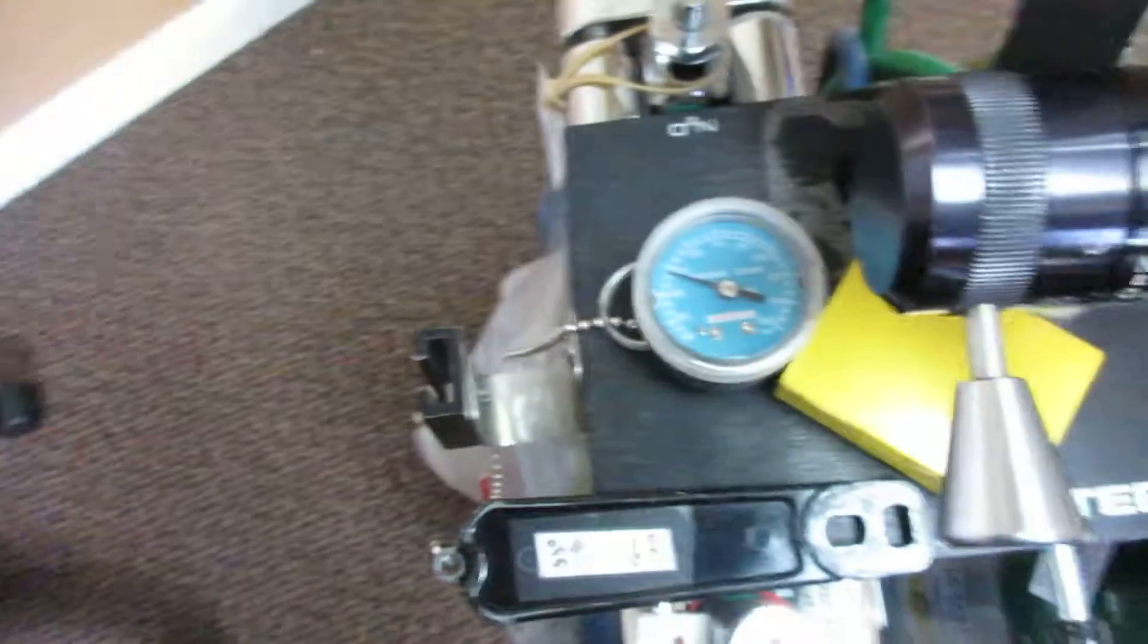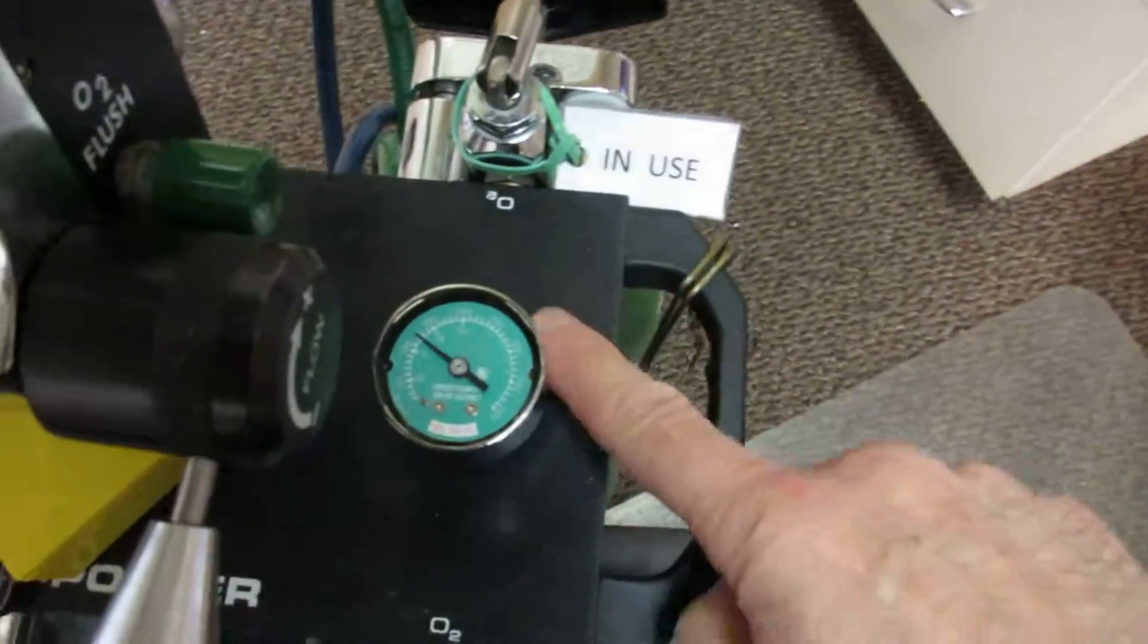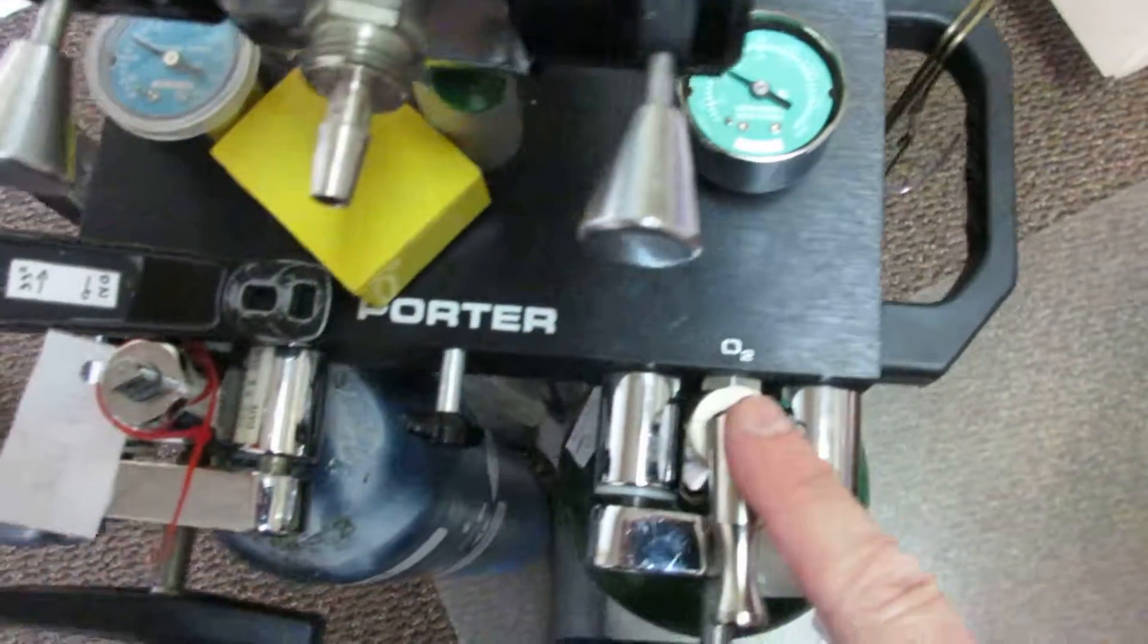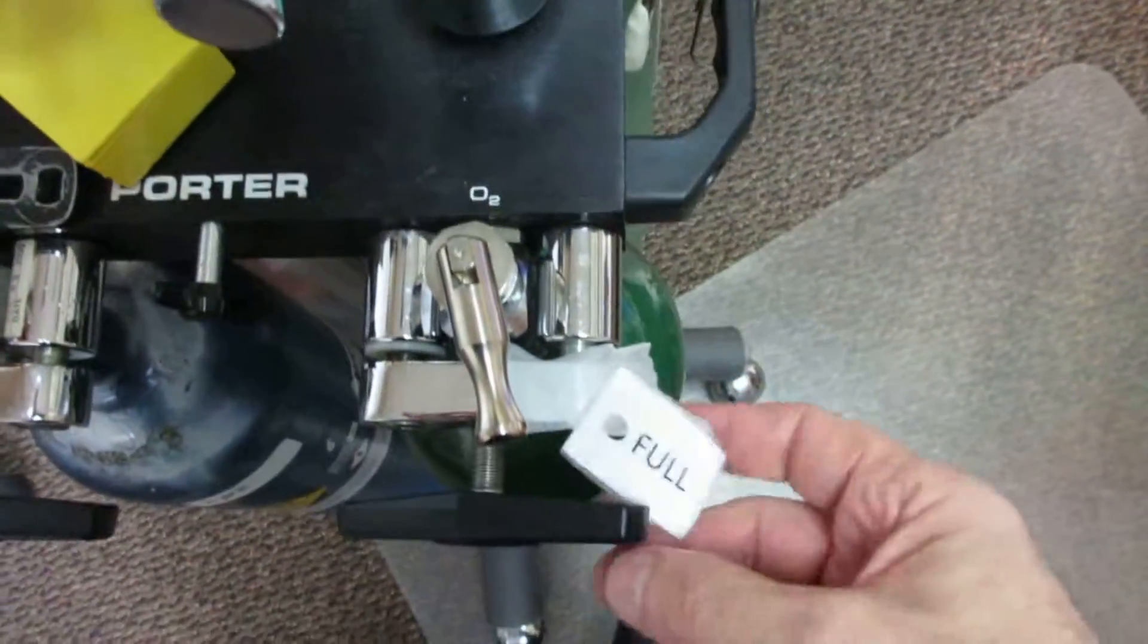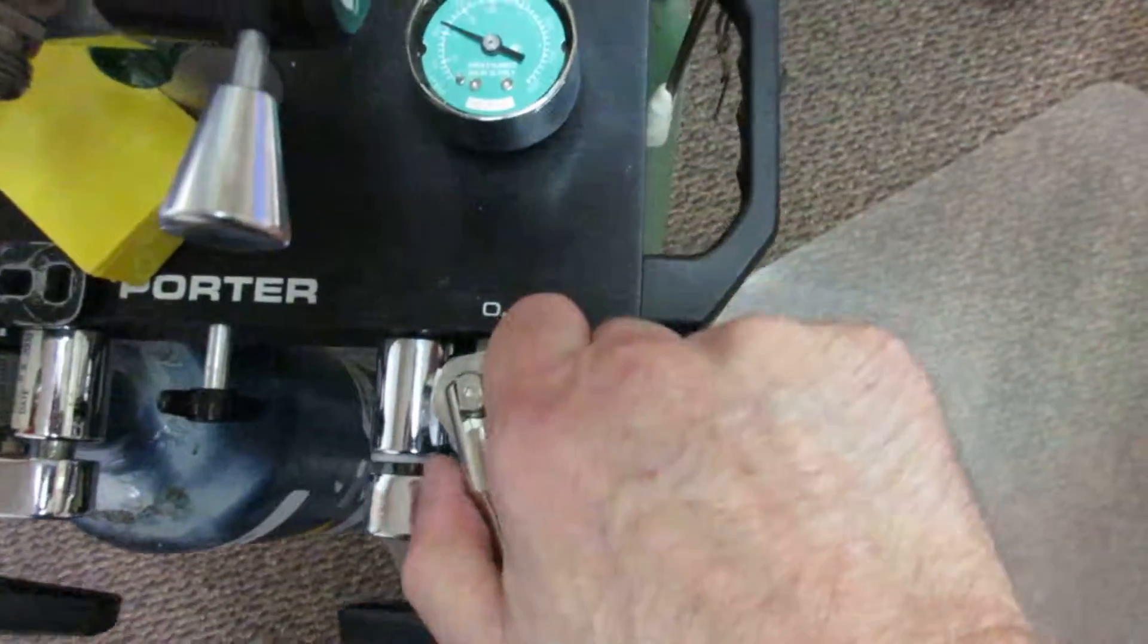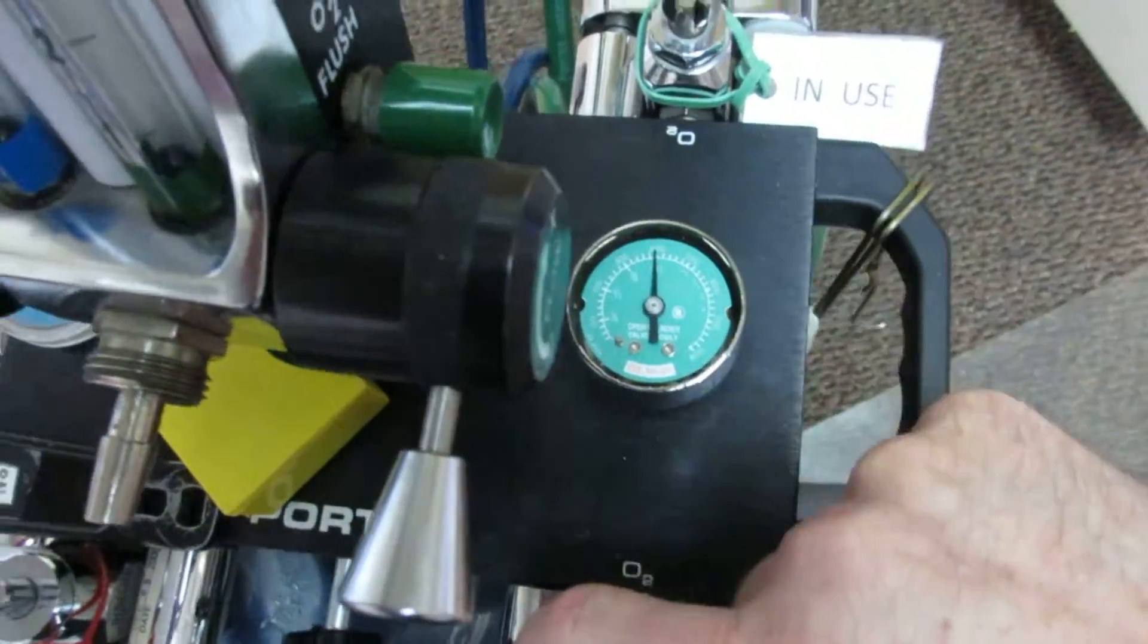We're not sure which of these two tanks has nitrous. We see that this oxygen only has about half a tank, so what we can do just for kicks is go ahead and hit the other one which says it's full. Let's check it out and it goes on up, so that one is full. So we know that those two are usable.